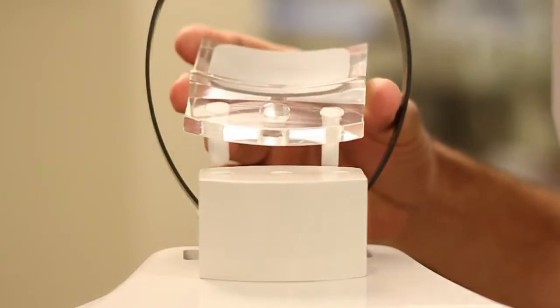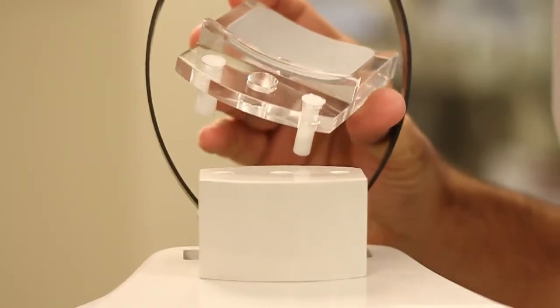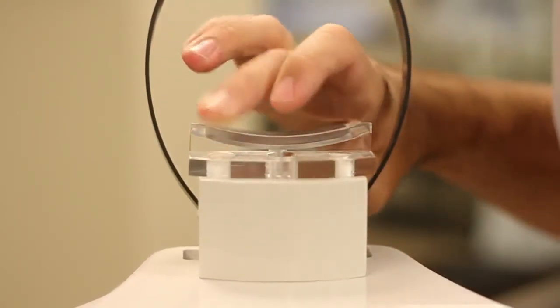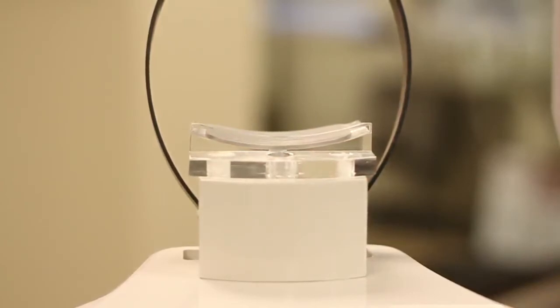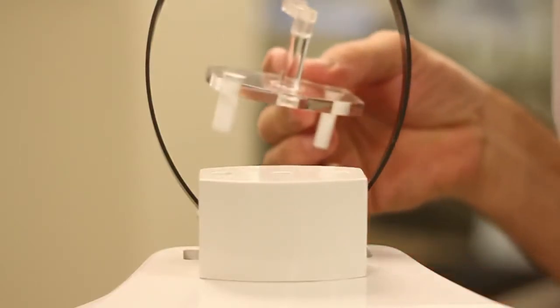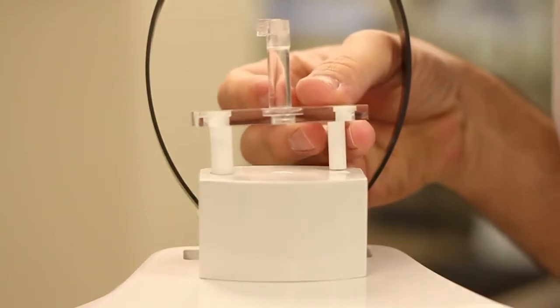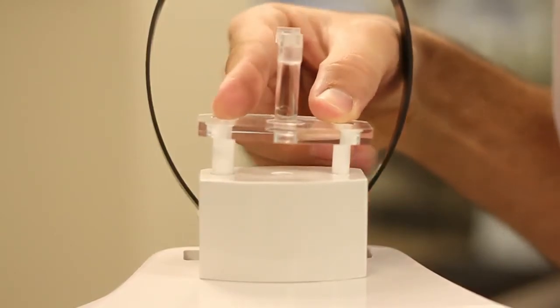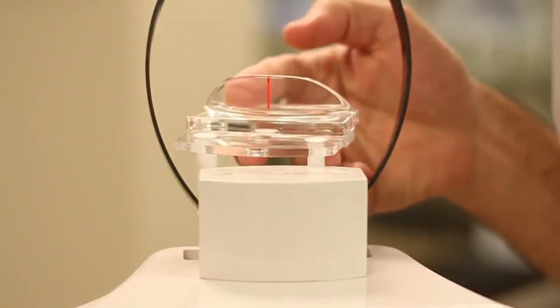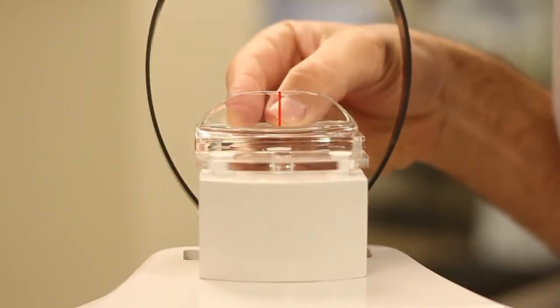In addition to the control panel operation, there are various chin rest options depending on the type of x-ray being taken. The clear chin rest with gray colored pad is used for all panoramic, pediatric, low dose, improved orthogonal, and bite wing images. The clear chin rest with a built-in bite stem tab is used for TMJ and sinus images. Finally, the clear chin rest with adapter is used for any patients who are edentulous or have a severe overbite or underbite, or those patients who cannot use the bite stick.